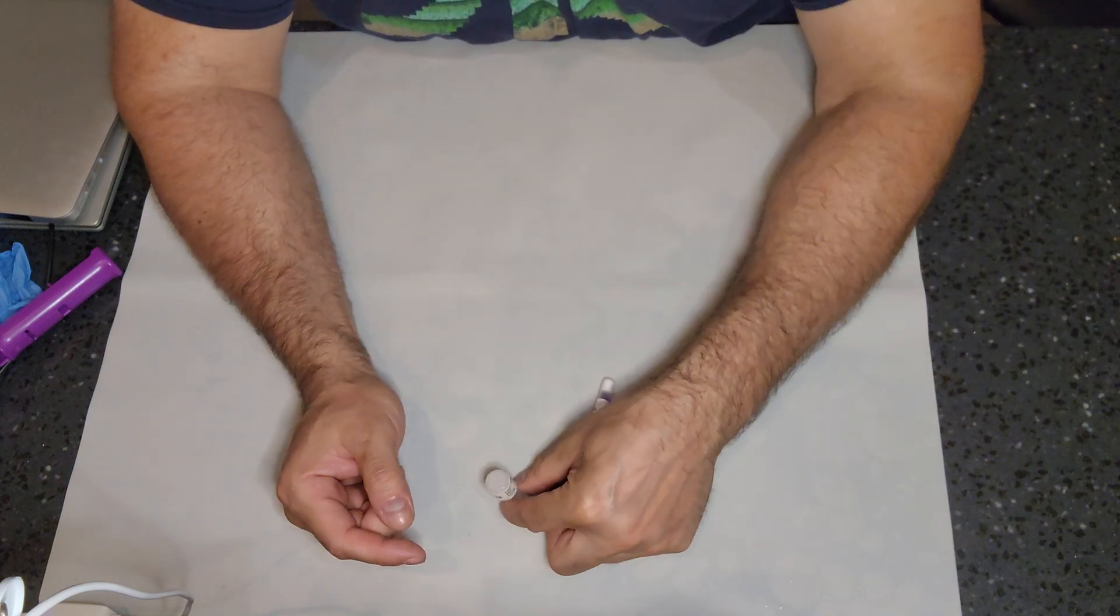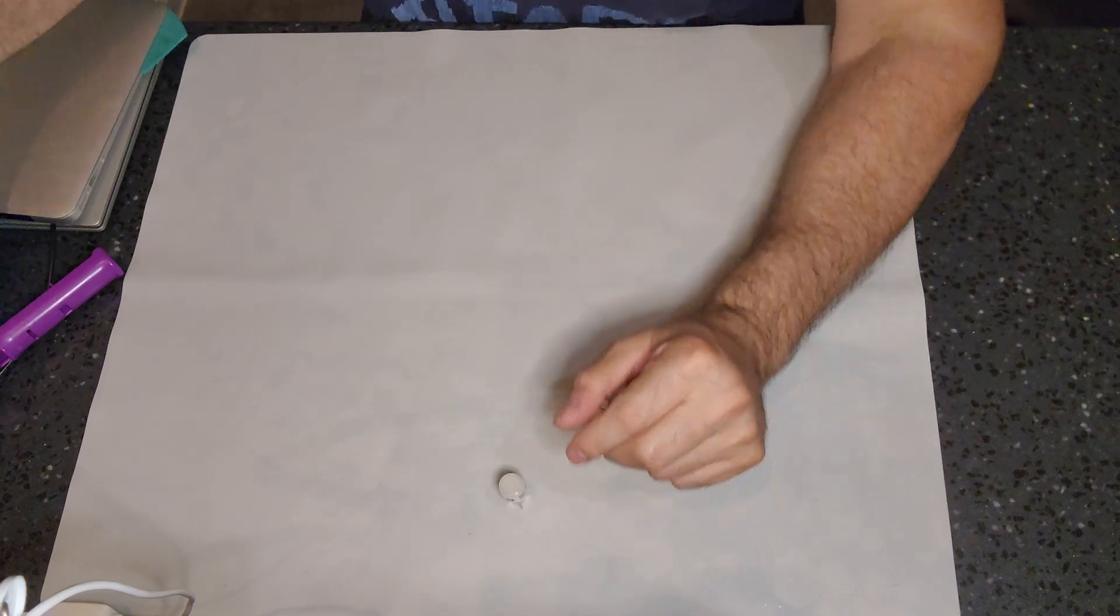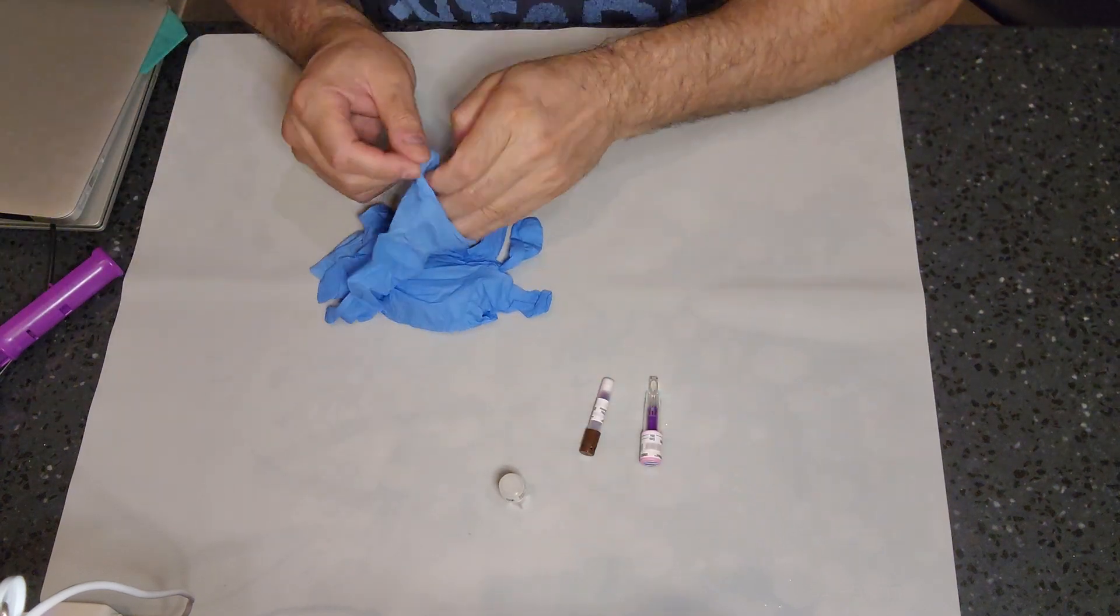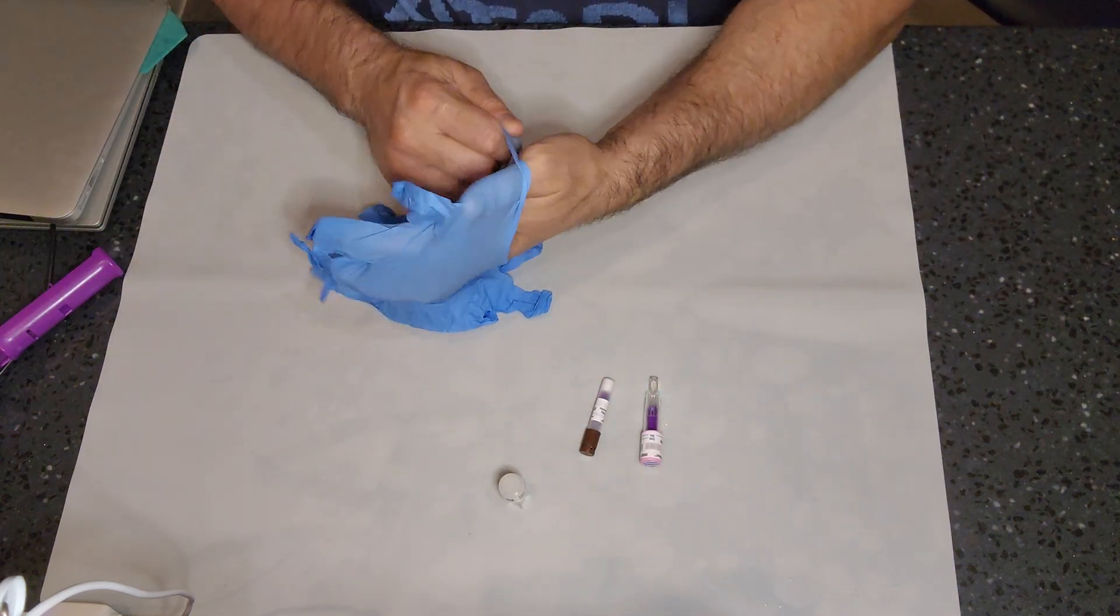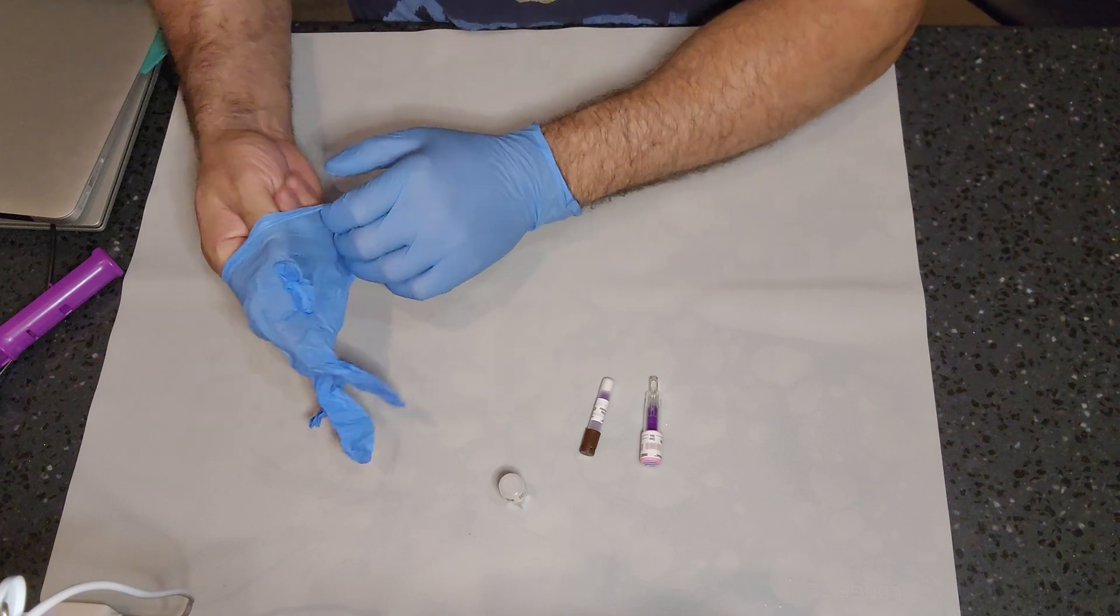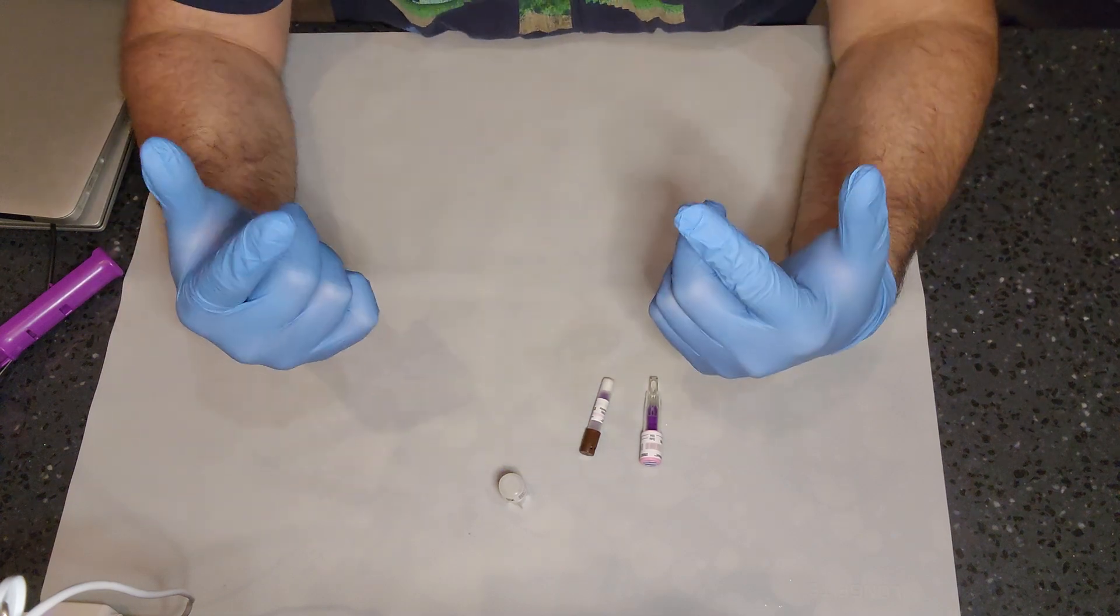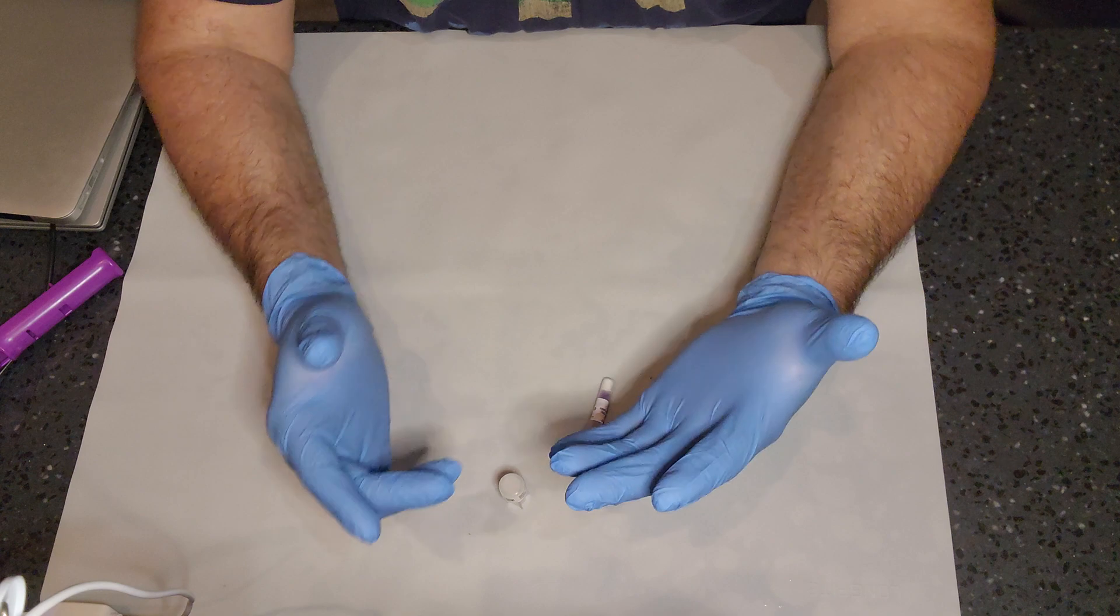But before we do that, safety first, right? Have to wear those gloves. And I just happen to have a pair of gloves right here. Place on your gloves. Please, again, follow your IFUs.